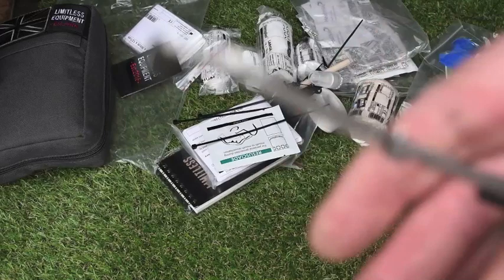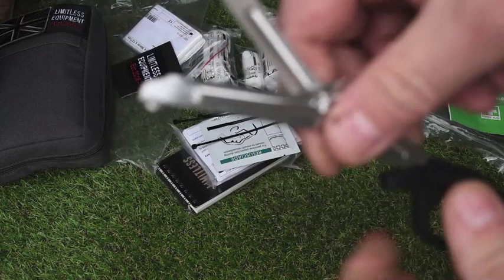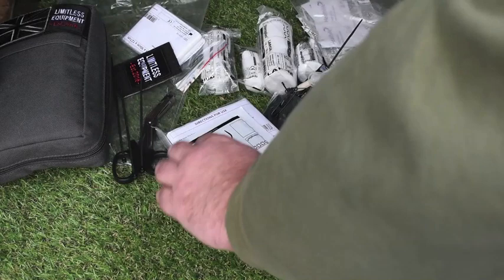Good quality shears. Sometimes you get really flimsy ones — you've got to watch for the quality of shears. These are tough and robust; I like the quality of them. They don't bend like a tin can. They're about two and a half millimetres thick, so they're really good. Good for cutting plastic bags and putting around different dressings.